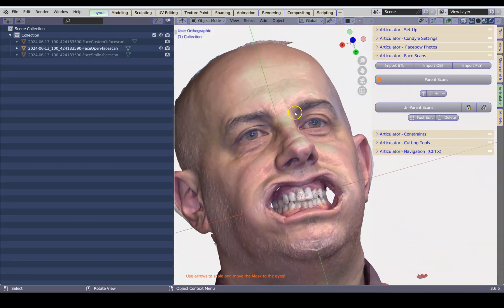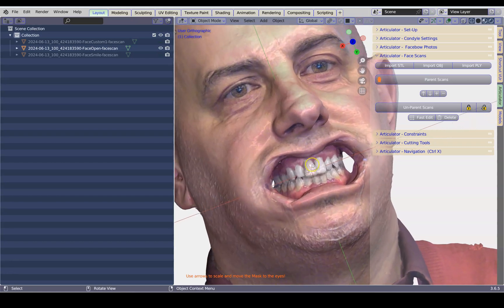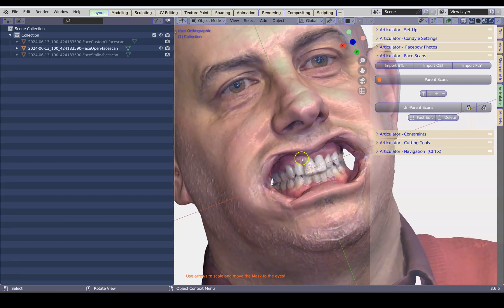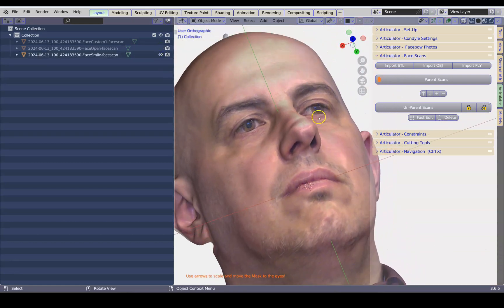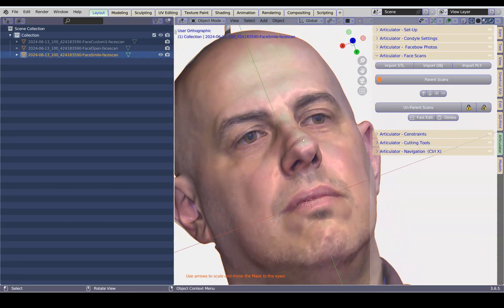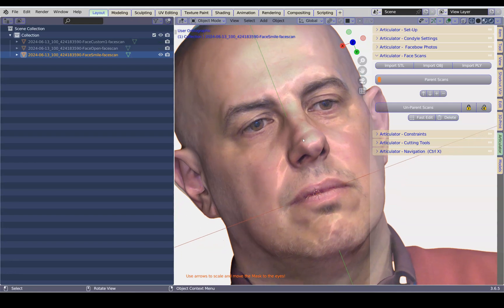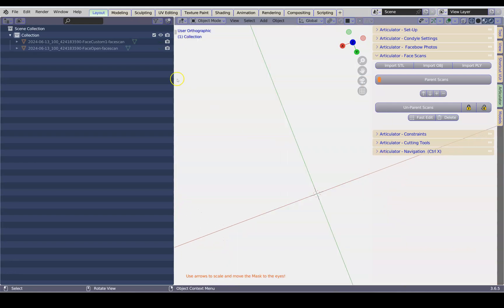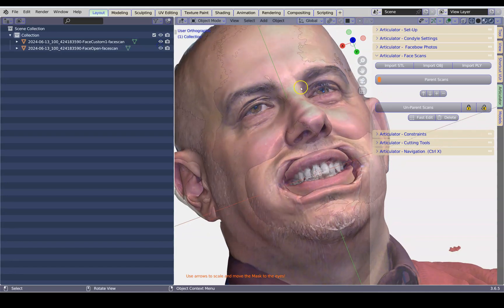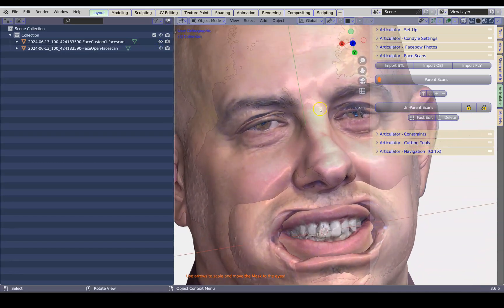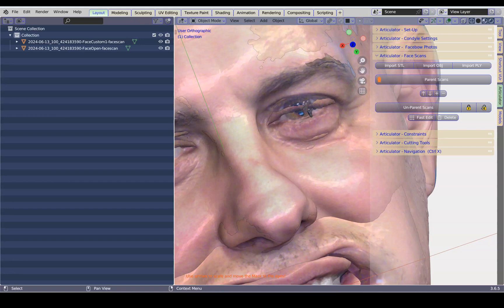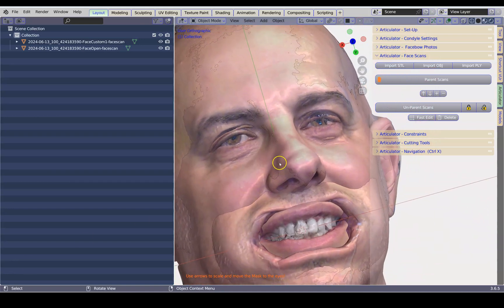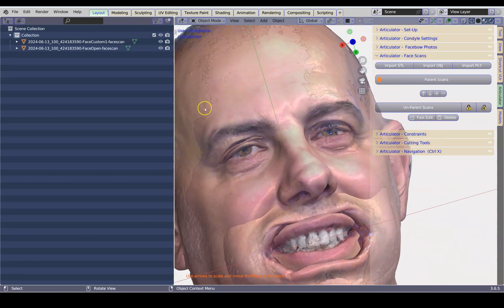We've got one sort of semi-smiley face. The next one we have wide open, which is really good for ICP alignment of the models. And then we've got another one which is a serious face — I'm not going to be using that one at all, so I'm going to X-delete it. If you look carefully, there's a bit of an overlap. This can happen depending on which software has been used, but we can deal with this later.